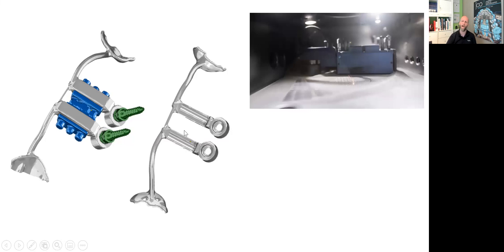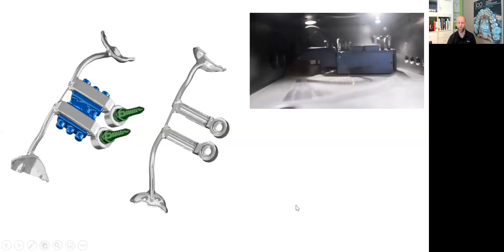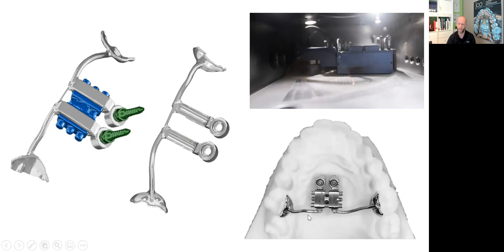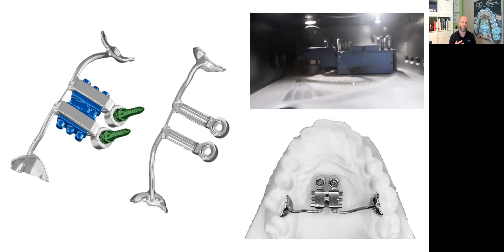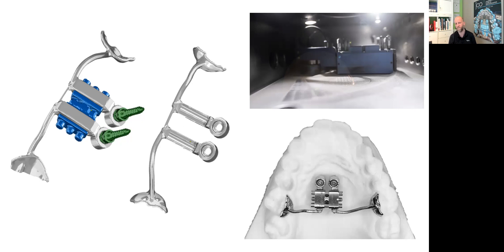Then we uploaded it to a metal printing service, a selective metal laser melting service. And within 24 or 48 hours, you will get it back like this. And I think this is the future. You get your own technician. You decide it in your computer. It goes so quick. It's quite easy to learn. And then it's getting metal printed. It's fully individualized patient centered treatment. And I'm enthusiastic to be allowed to show you more and more of these small digital gadgets. And I believe this is the reality and the future of our wonderful profession.